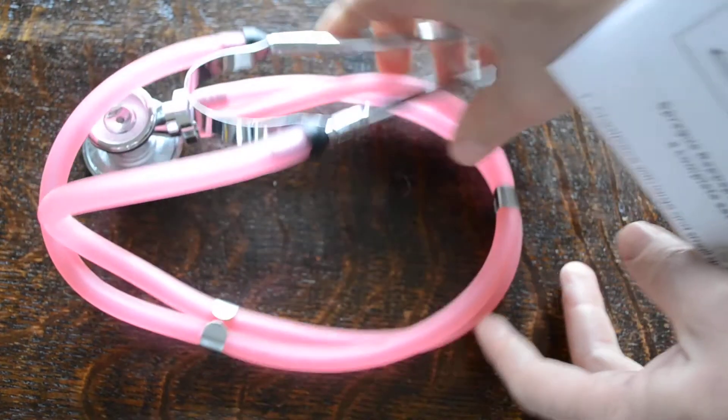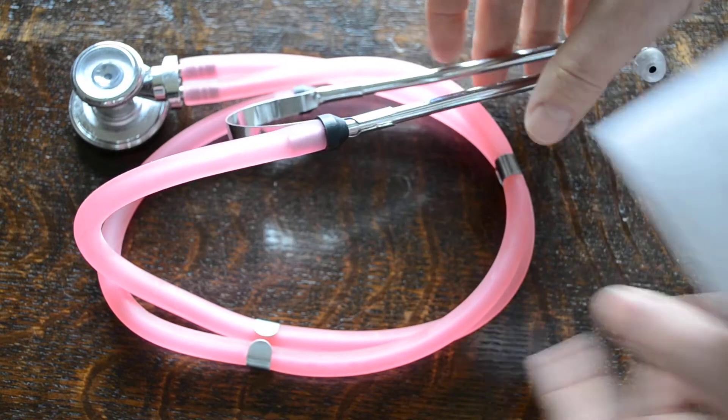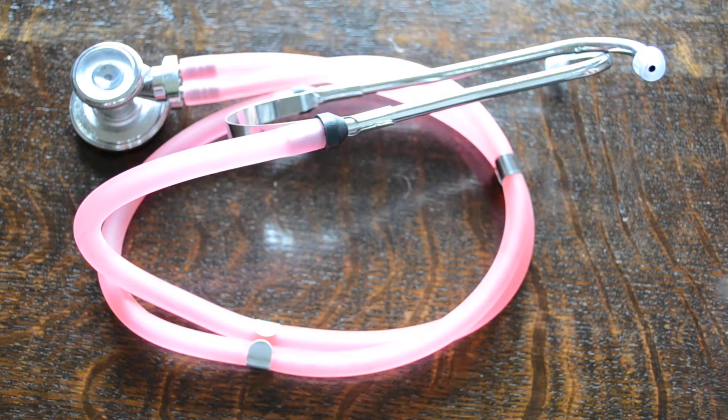So that's the ValueMed translucent pink, sometimes referred to as bubblegum pink, Sprague Rappaport professional medical stethoscope pack.